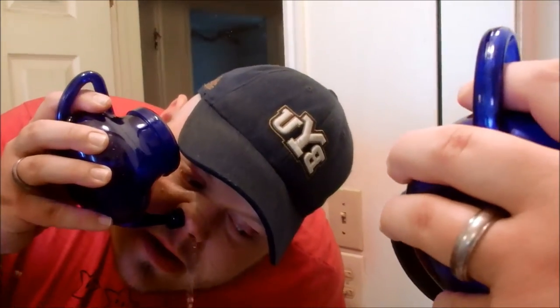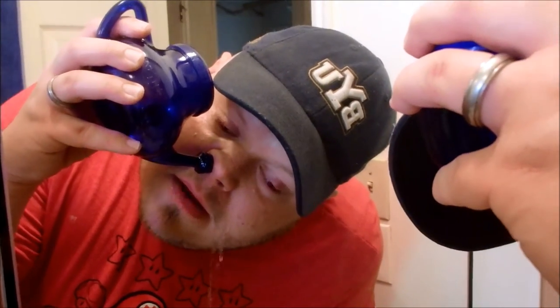About half. Okay, so we got that nostril, now we're going for the other one. Remember, you want to lean forward so it doesn't go in your throat — you just want it falling out. And you probably want to do this into the sink and carefully aim where you're going.